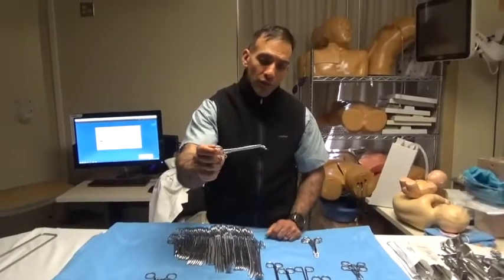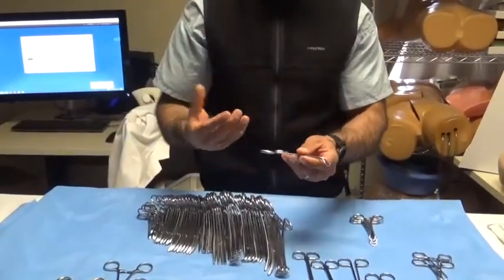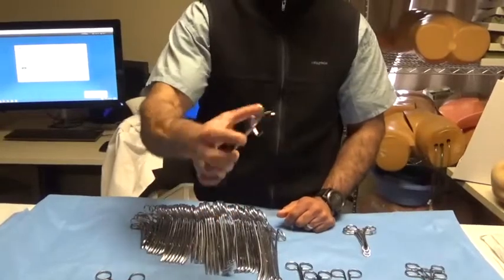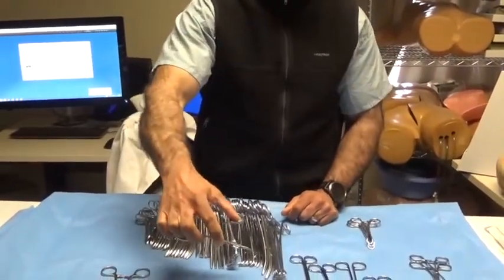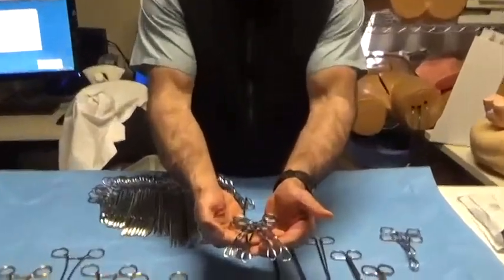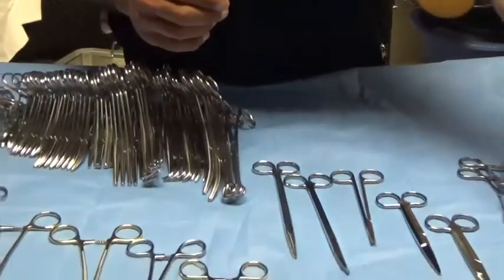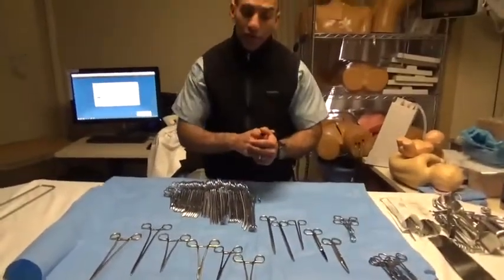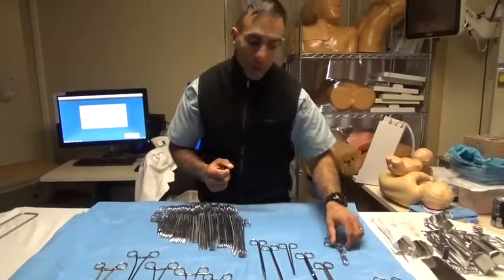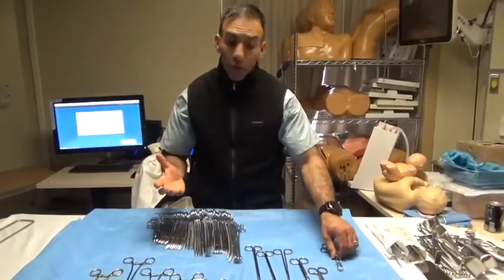The intent behind this is safety, so be very careful when handling penetrating towel clips. In addition to holding towels, they can be used for skin retraction, and orthopedic surgeons will use them to reduce small fractures since they have good grip and are sharp — they can hold bone together. They come in sets of four to square off a surgical field. Interestingly, penetrating towel clips can also grasp and elevate the abdominal wall for laparoscopy, for needle insertion or OptiView insertion.